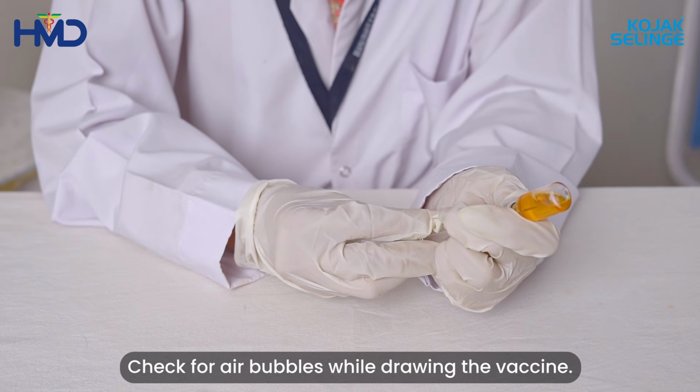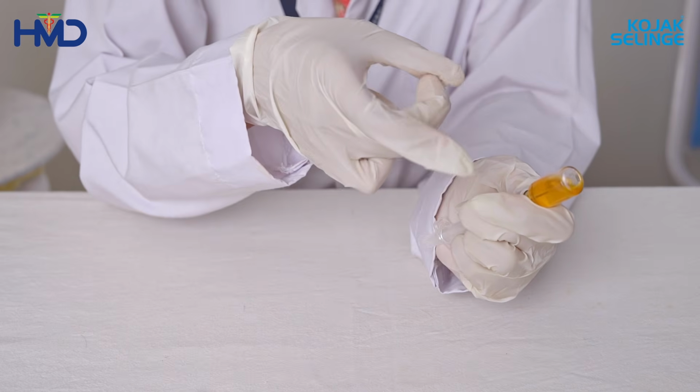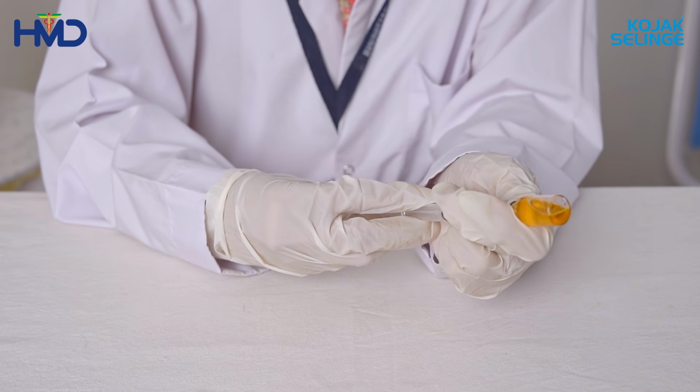Check for air bubbles while drawing a vaccine. Inside the vial, tap the syringe to remove any air bubbles and adjust the dose accordingly.